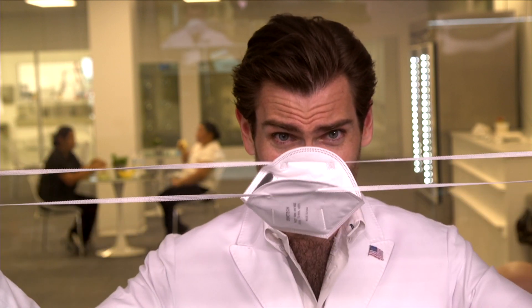Good mask. Let's try the head straps out here. All day long, I can do this all day long. It ain't breaking. Look at that — that's insane. One thing I've noticed: I haven't even been talking about smell. There's no smell in any of these things. Seriously, nothing. I wonder why — like, you'd think that with the glue process of the nose foam there would be a smell, but there's not.